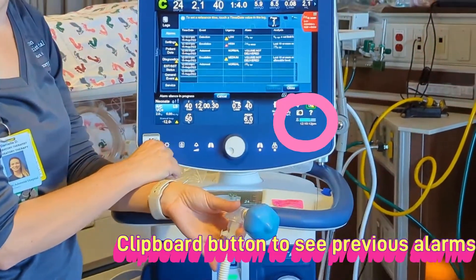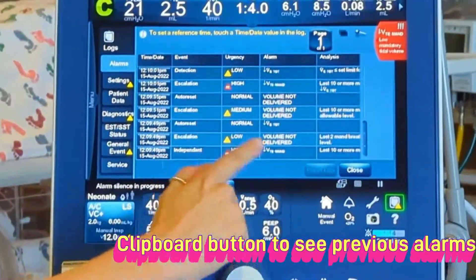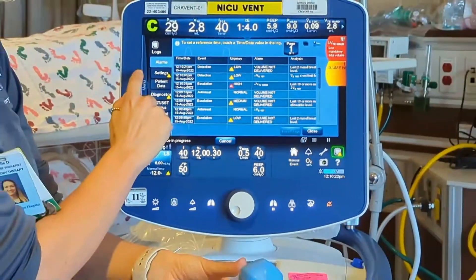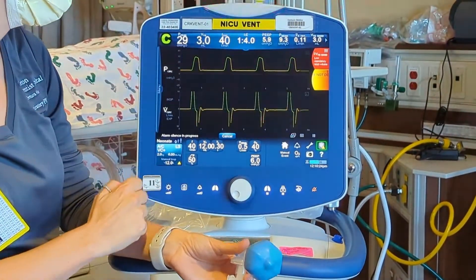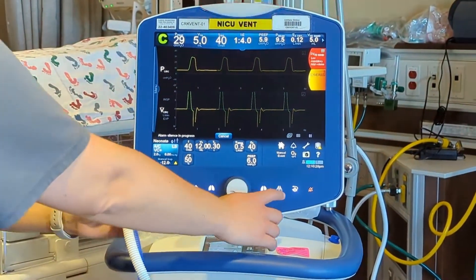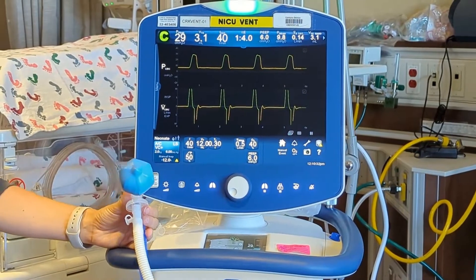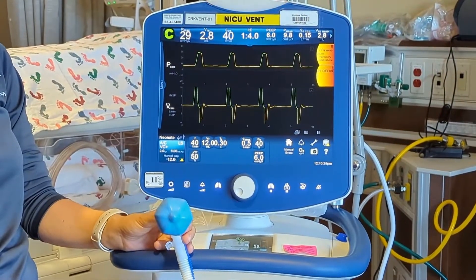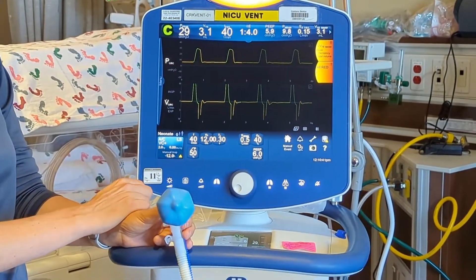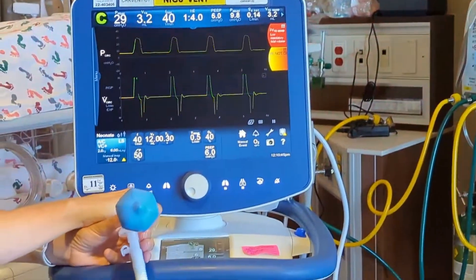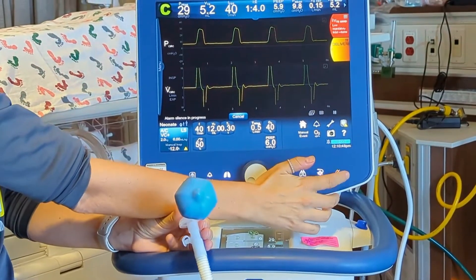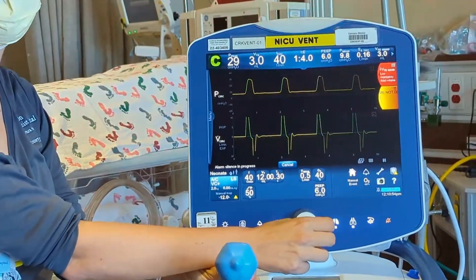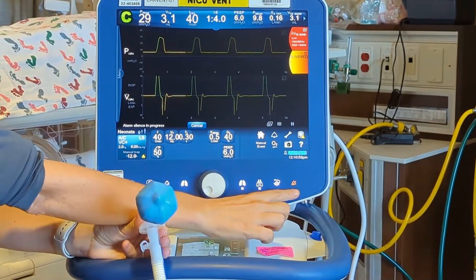Now that a few alarms have gone off, you can see everything that's gone off and what time it occurred. If you're not sure, no problem — we can pull that up to see what's going on. You can audibly hear what the alarms sound like. When you hear that louder alarm and see red, that's when you need to go check on the baby and troubleshoot. The alarm silence button silences for two minutes.